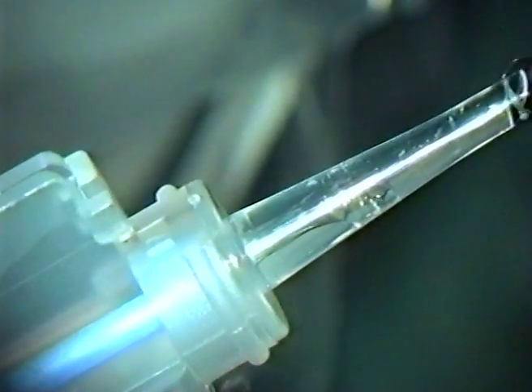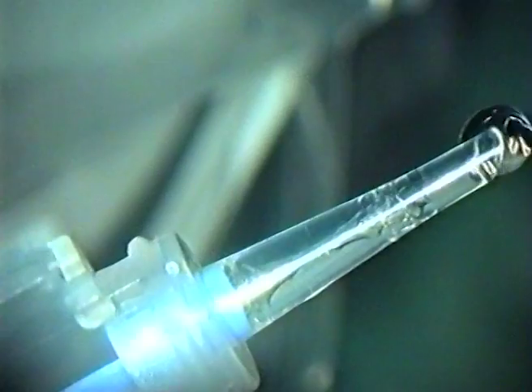Before proceeding, correct orientation of the lens within the nozzle is observed.